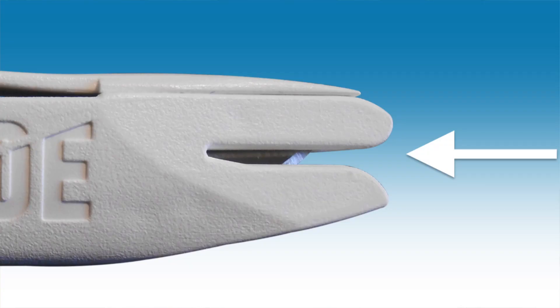Finally, I'm going to talk about the patented suture trimming groove, a feature not available in other safety scalpels. This feature reduces the cost of instrumentation by eliminating sterile suture trimming scissors and also encourages safety in scalpel use by the provider, because the blade is in the retracted and safe position when trimming suture lengths.